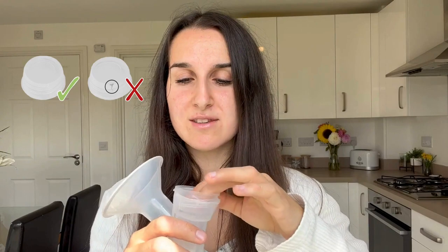We then need to take our bottle and screw it on securely. This is the membrane pot — check to make sure it's intact with no rips. It needs to face the correct way with the smooth sides facing outwards. Once it's in, just give it a tap to make sure that it's fully down.